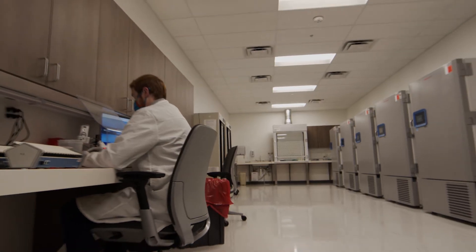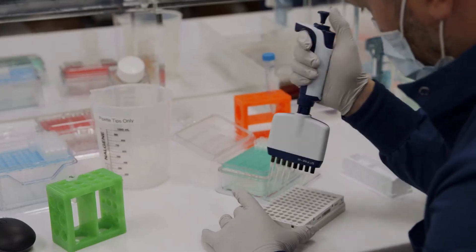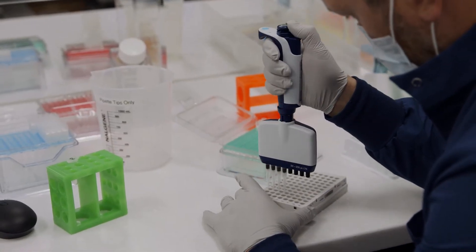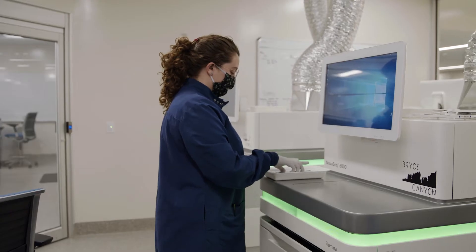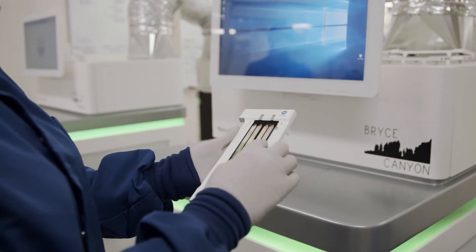This is also where we do the hereditary gene processing. We're going to learn a lot and we're going to be able to help a lot of people from the things that we learn about the human genome. We believe that understanding a person's genomic predisposition to disease can actually help them stay healthier. We're looking for problems that can be screened for and then cared for proactively.